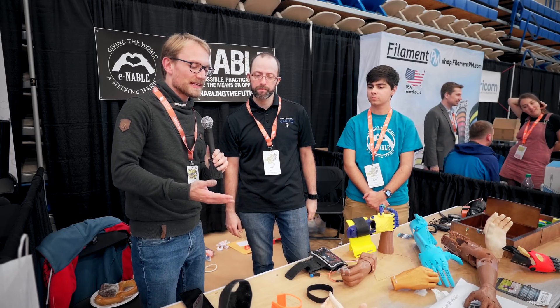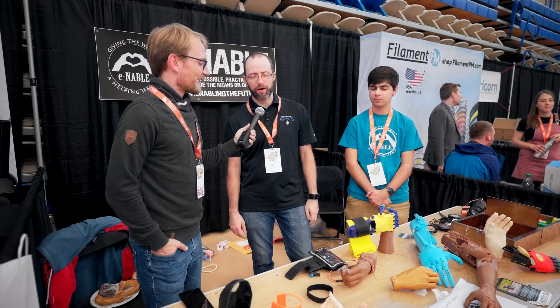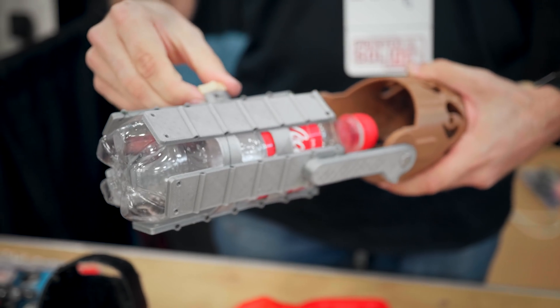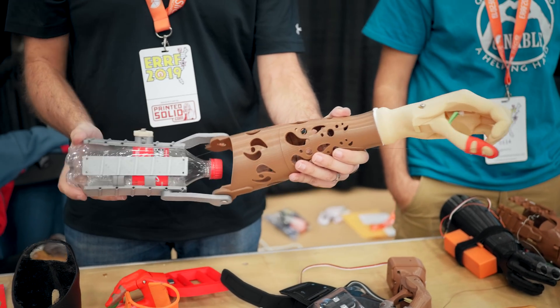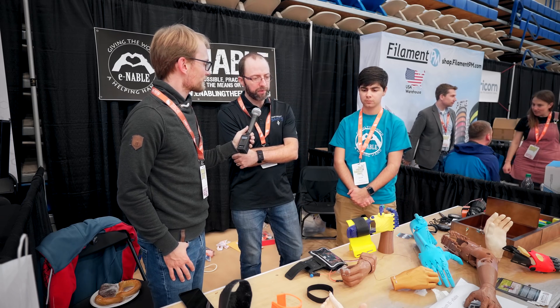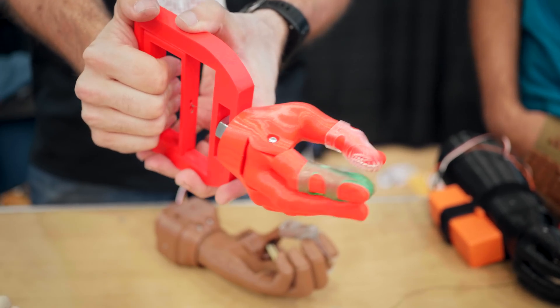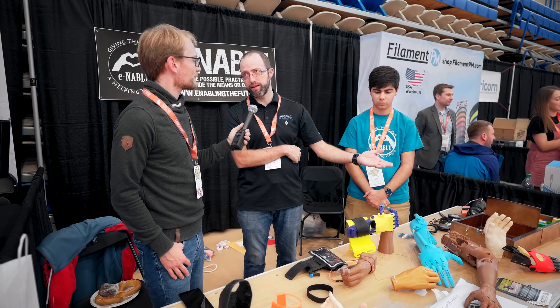So what you're making is hands mostly, right? Hands and lower arms — hands and forearms. Not up to the shoulders yet, but we're getting there. It's a completely volunteer project. The wearers don't pay for their prosthetics. We found that people needed prosthetics but they couldn't always afford them, so 3D printing is a cheap way to make them — very low cost — so volunteers can pay for the expenses and then we can give the hands to the people that need them for free.